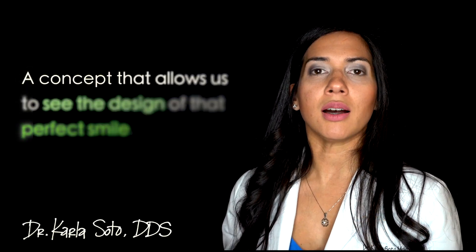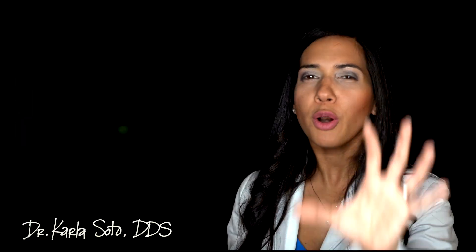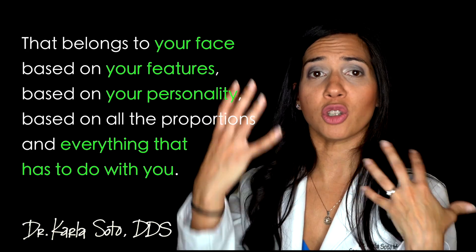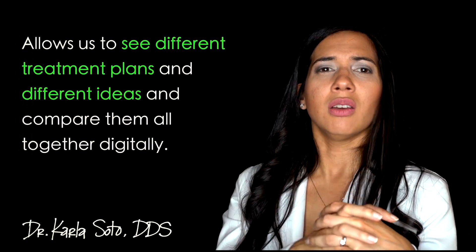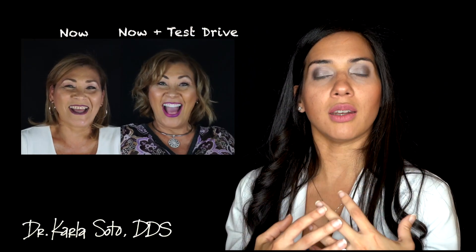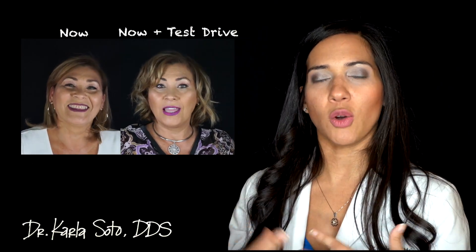Basically, Digital Smile Design is a concept that allows us to see the design of that perfect smile that belongs to your face — based on your features, your personality, and all the proportions. It allows us to see different treatment plans and ideas and compare them all together digitally, which would be impossible to do in the analog world. Once we have all this information, we do a 'test drive' — a little shell of material we try on — and then take cool video and pictures to really show you what it would look like if you had that perfect smile you've always wanted.